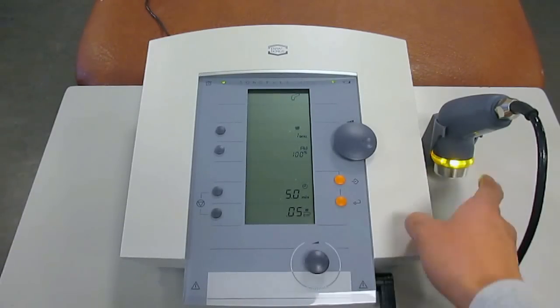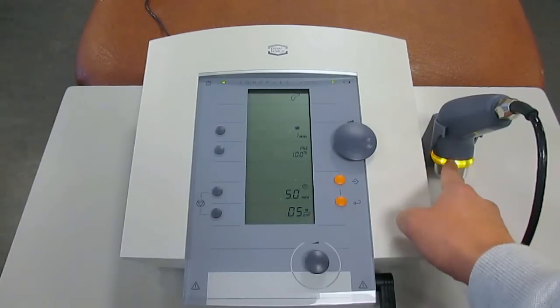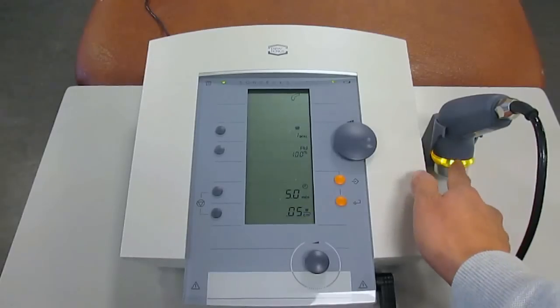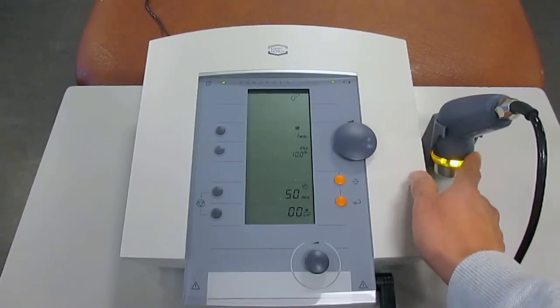When you do that, the lights on the ultrasound transducer will turn on to indicate that you are not actually putting the ultrasound transducer head on a patient's skin.